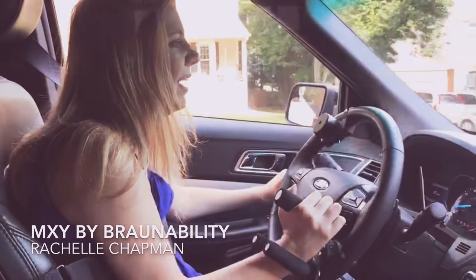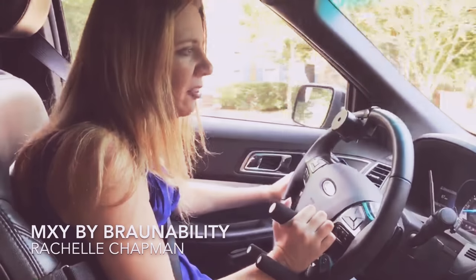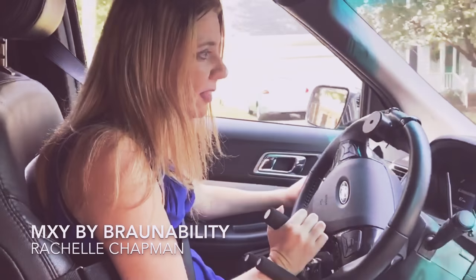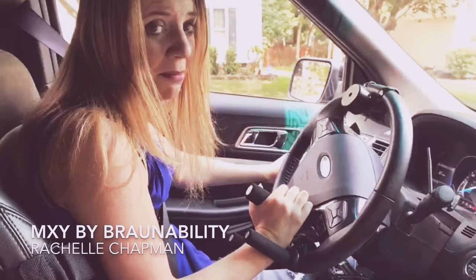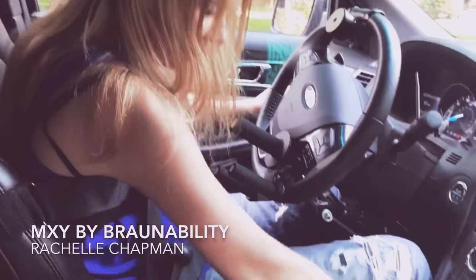This thing is really fun to drive. I like it because it almost moves more like a car, which is what I drove before I was hurt. It's really, really fun — I feel really secure and safe in this car. I also wanted to show the backup camera, because this is awesome. It's like the best backup camera I've ever seen.